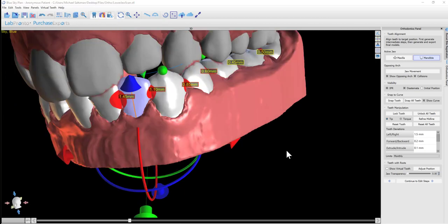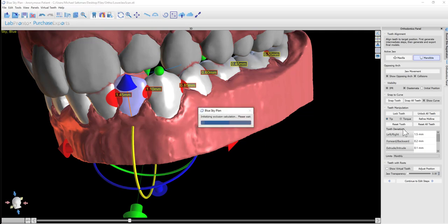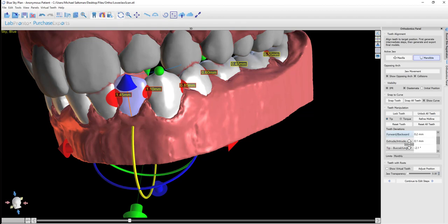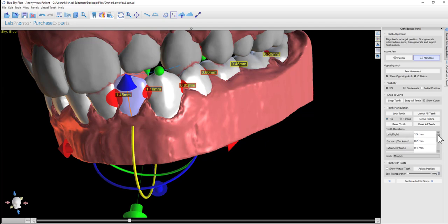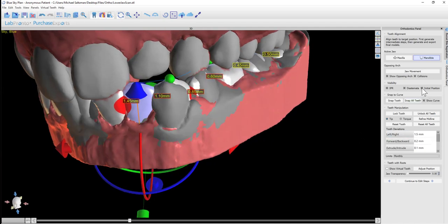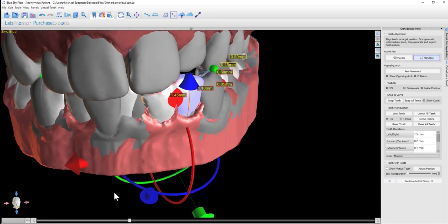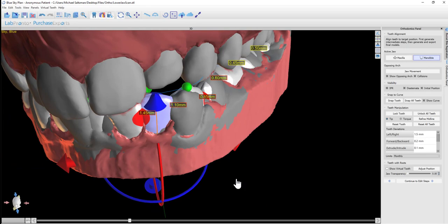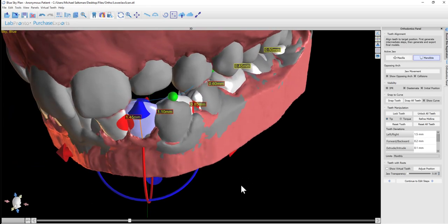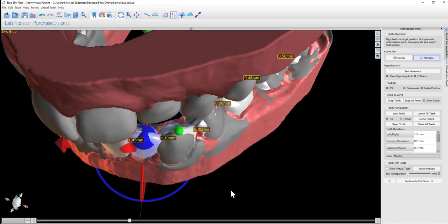Any movement that we make to a particular tooth, whether via snap to curve or manual adjustment, when we click on the particular tooth and make it active, we can see the tooth deviation chart on the right-hand side that shows us the amount of movement of the particular tooth. This is the total movement from the initial position to the desired position. If we want to see the actual initial position of the tooth or teeth, we can turn on initial position. The software shows us the initial model at the same time as showing us the virtual tooth setup.